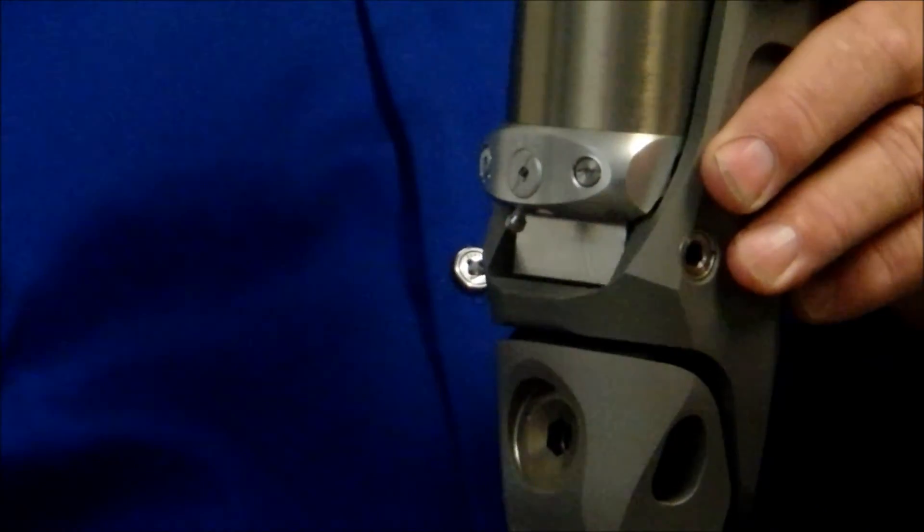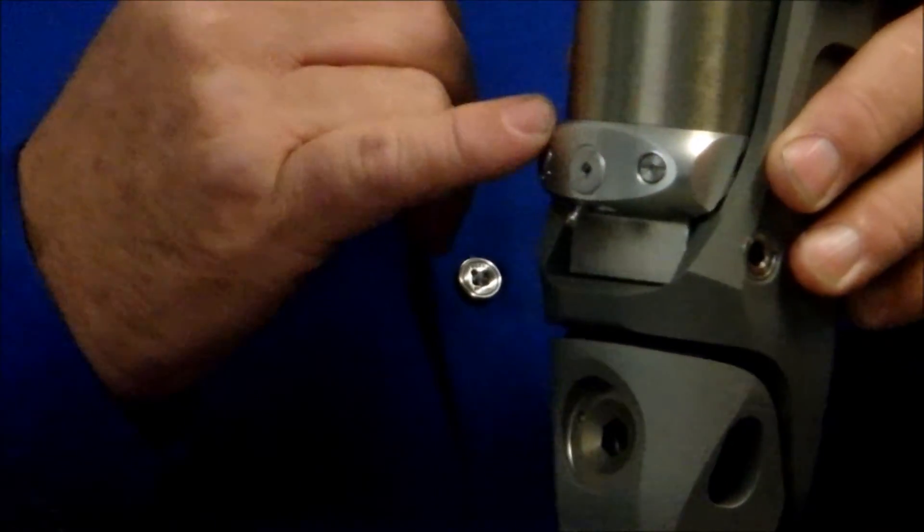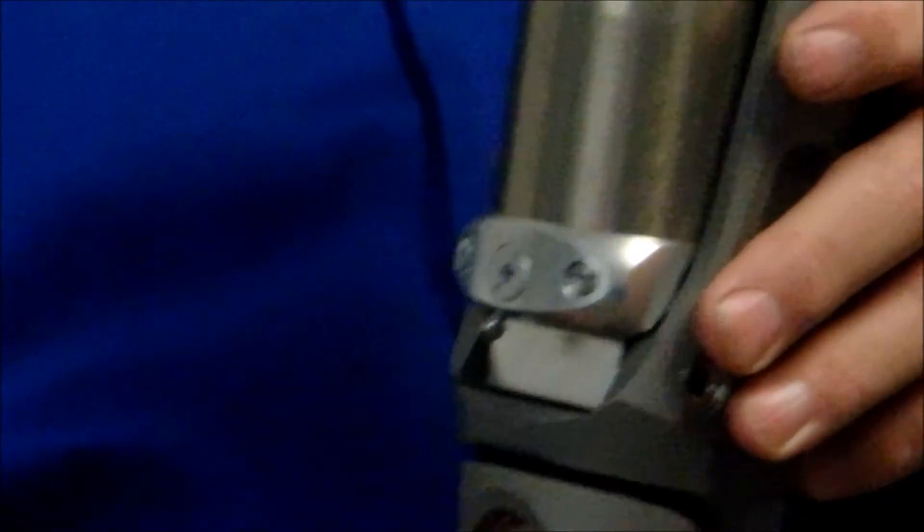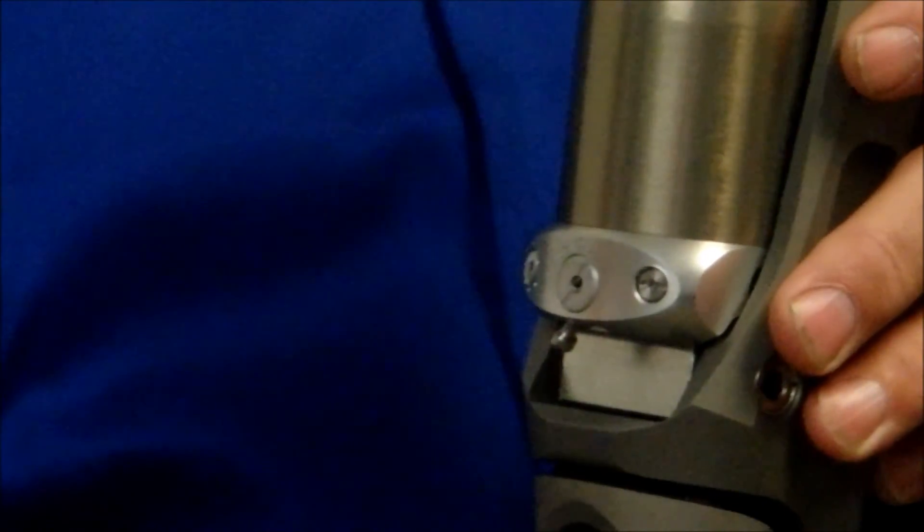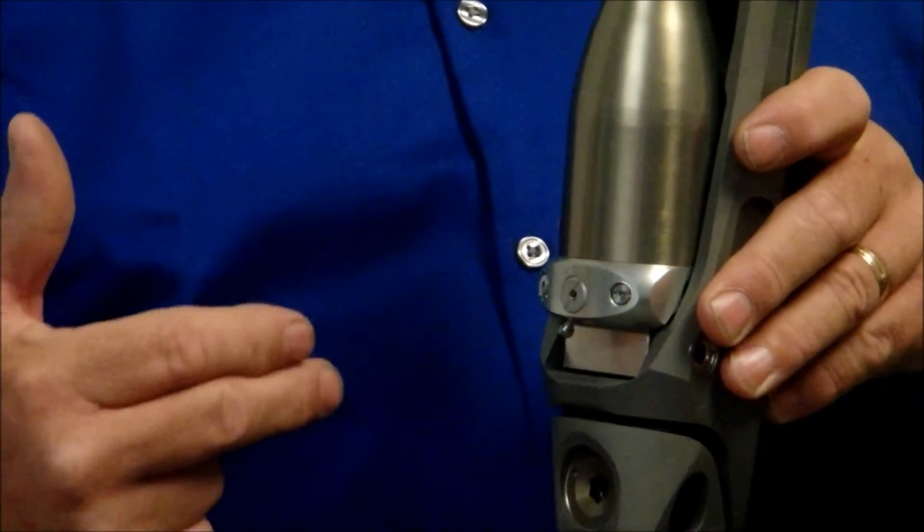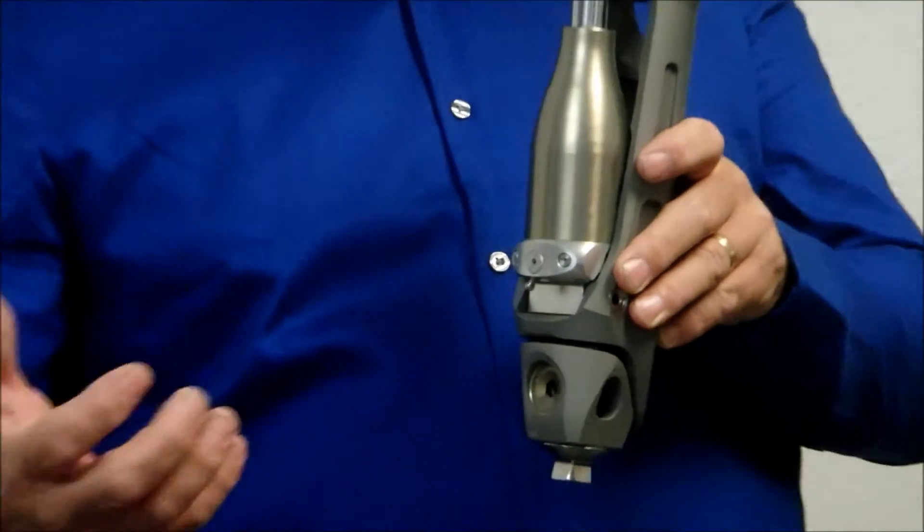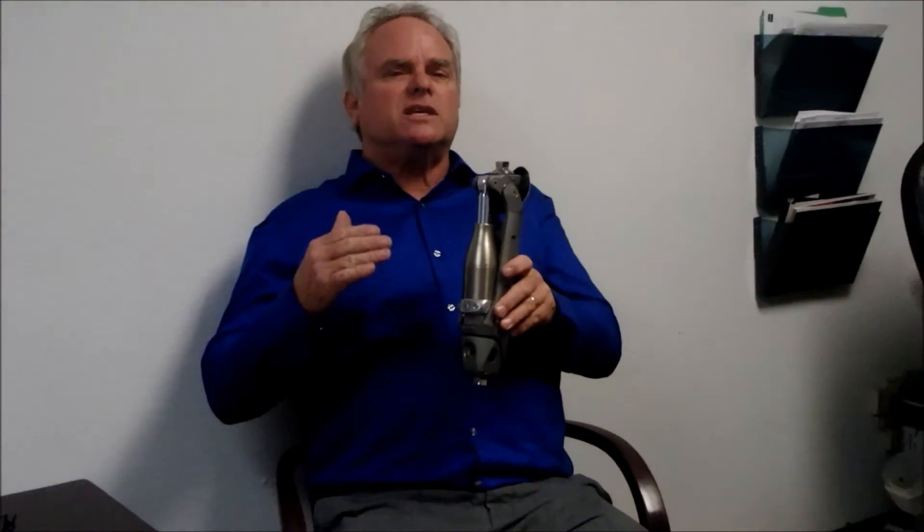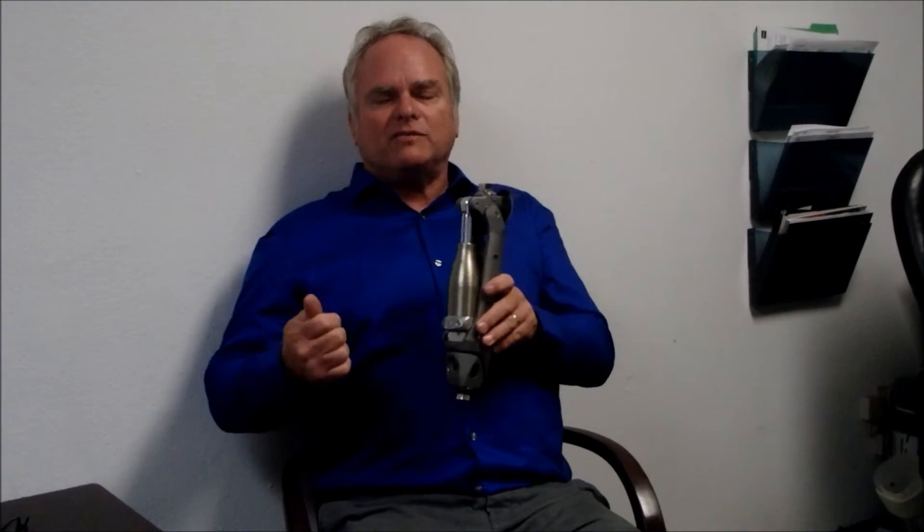All these different activities that also need good stance yielding. There's another feature this knee has that's surprised me in my 30-some years of working in prosthetics. It's the first knee that I've experienced that walks backwards with a flexed knee. And you're going, what does that mean?